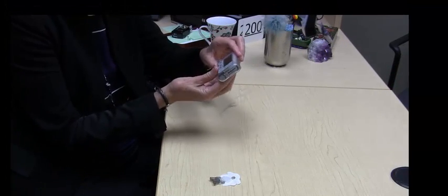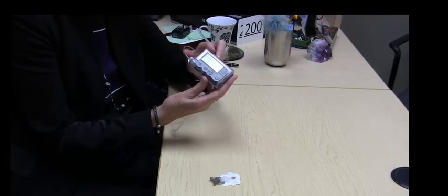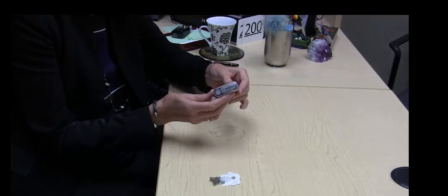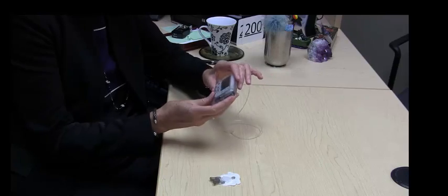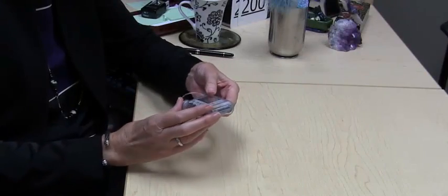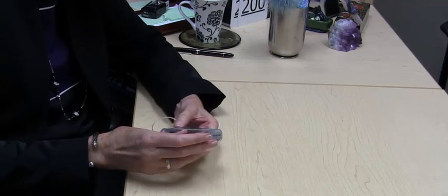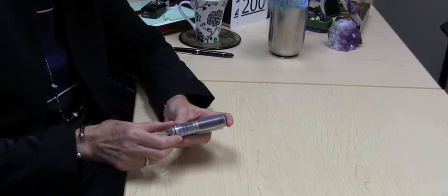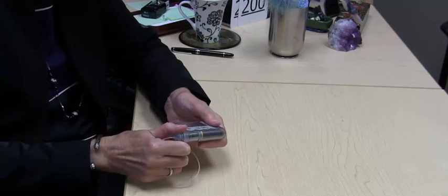I'm holding an insulin pump here and as you can see this is about the size of a pager or a cell phone, and this pump is battery driven. A reservoir or cartridge of insulin is fitted in here.